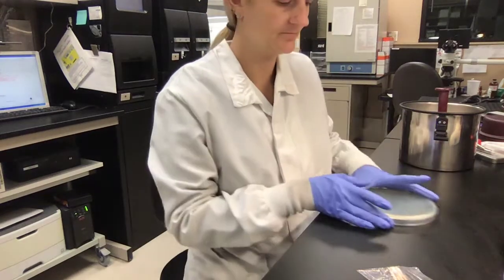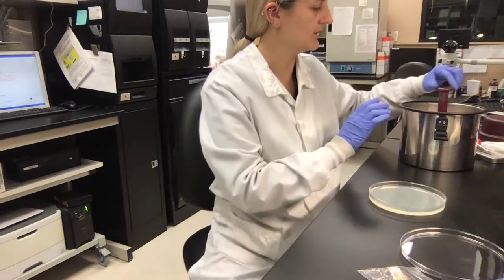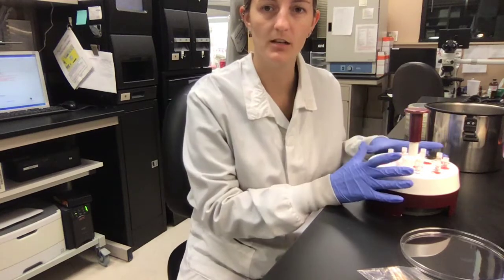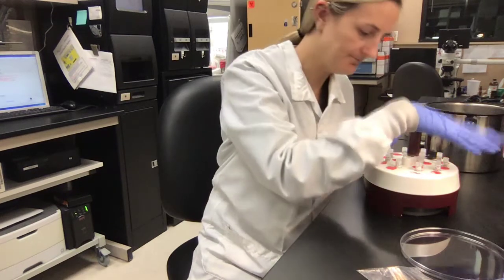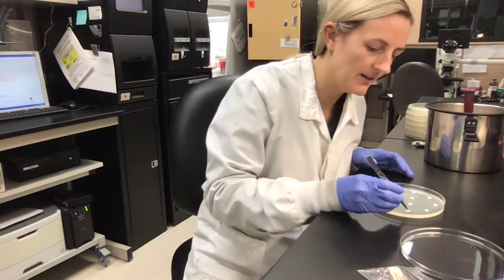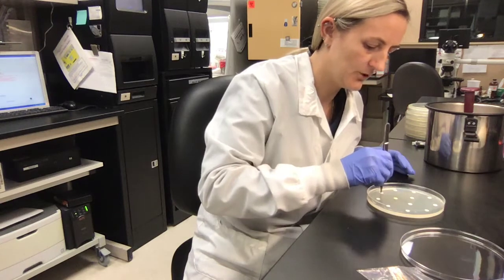Once you've done that, it's time for the discs. This one was a gram negative E. coli, so it's going to use a gram negative disc, which is what we have here. It has a whole bunch of different discs — thankfully it holds 12. Make sure it is locked and then press down. There are all the discs. To make sure they stay, go ahead and press them all down, because you don't want them to fall off and have to repeat the process.